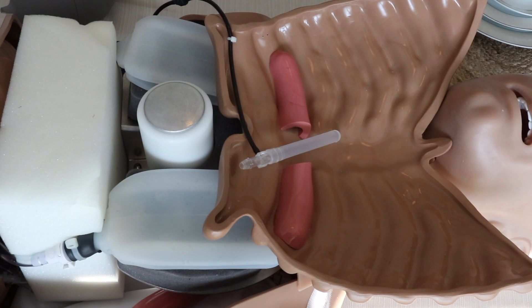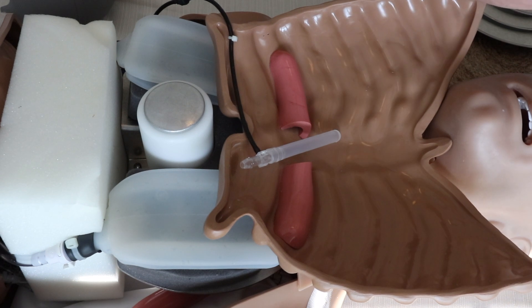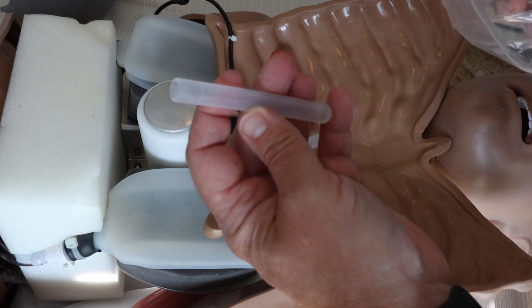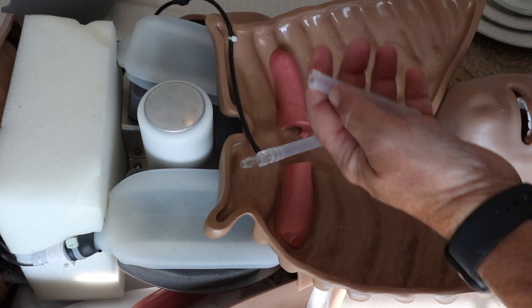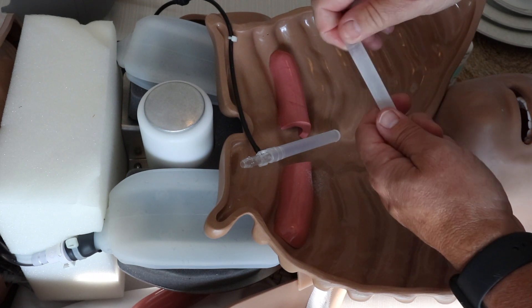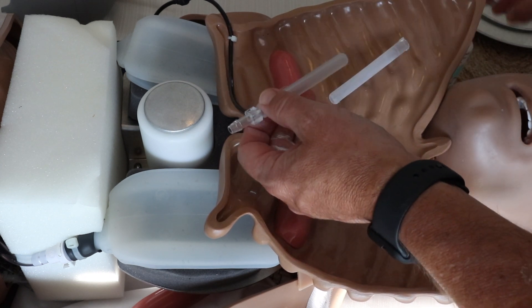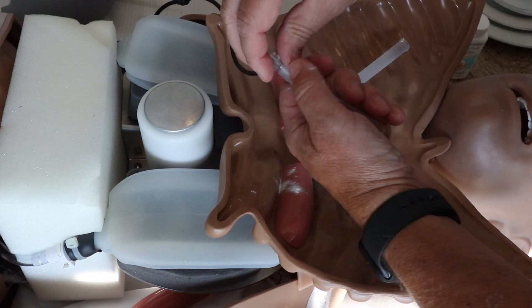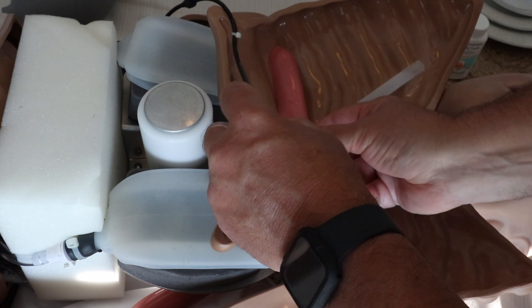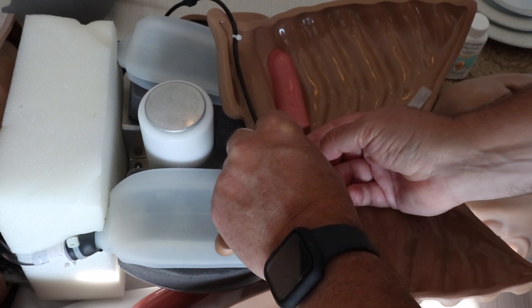There's some baby powder in the kit, and it's there for a couple of reasons. You may want to put baby powder on the mannequin's chest and face to keep the rubber from being quite so tacky. Whenever you're replacing these tubes, you want to use the baby powder as well — it keeps the tubes from getting stuck and makes it a lot easier. The first time I did this without baby powder it was extremely aggravating. Don't be afraid to use that baby powder; it really makes a huge difference in trying to slide things in and out.